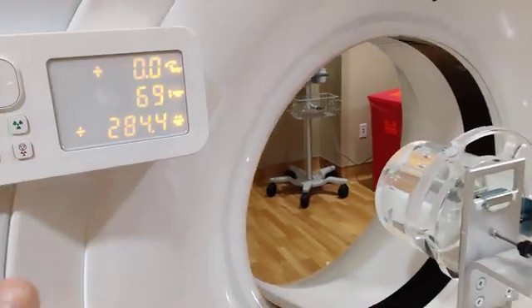Okay, so it's just telling you what you need to do. This is a check mark for skip automatic centering - that's if you were going to center it manually yourself, but we want the system to do it for us, so we're going to leave that unchecked.